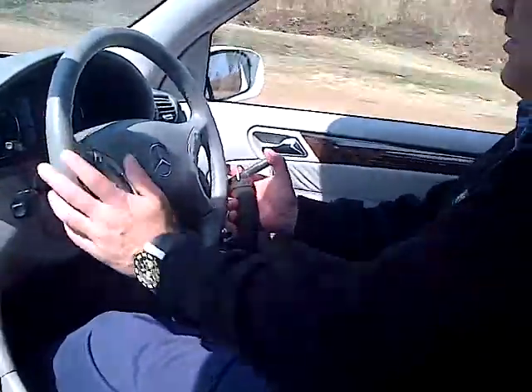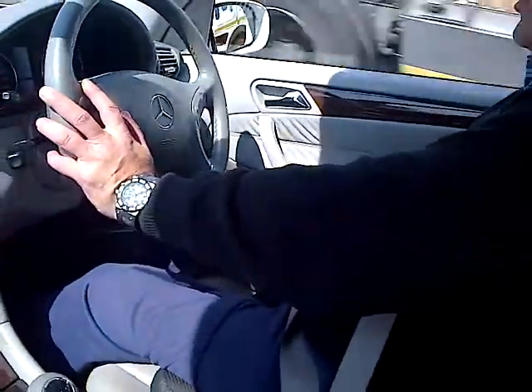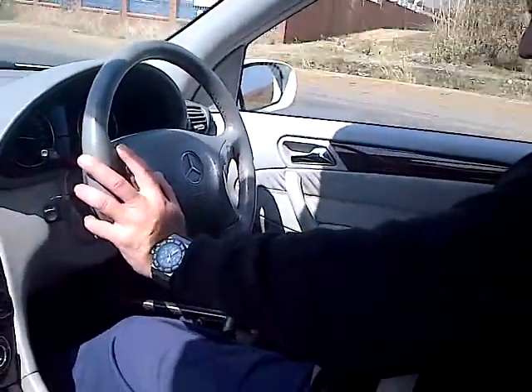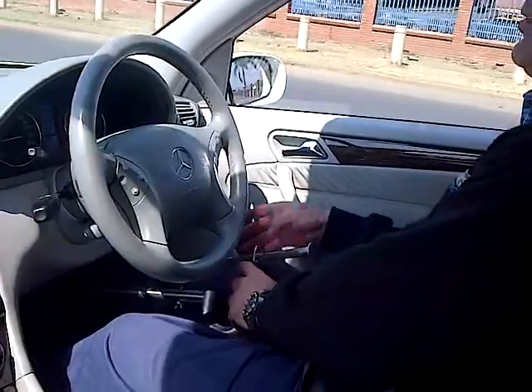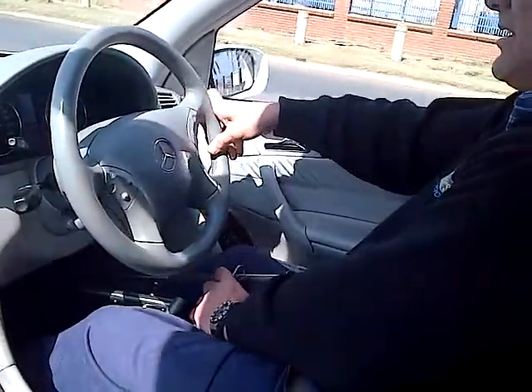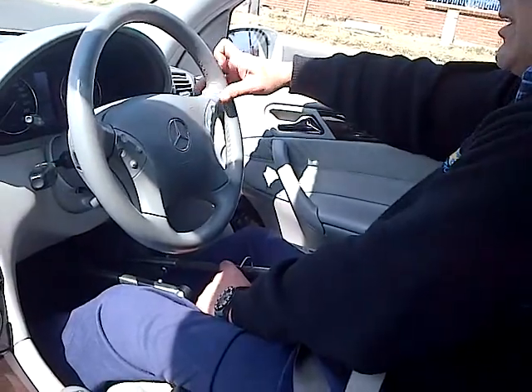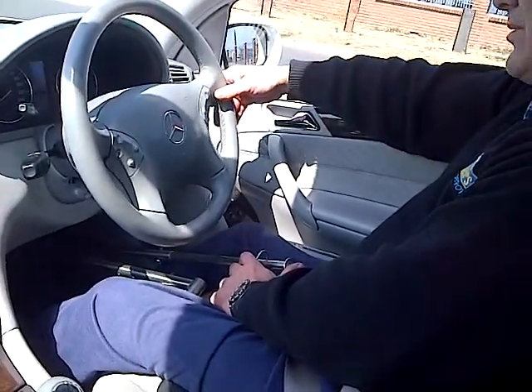You can either hold the steering wheel, let the controls rest on your leg, or drive with the controls in the center position. You can always change if you want to — you can drive with your left hand and use your right hand for the steering wheel, especially when your indicators and other controls are on the right-hand side.